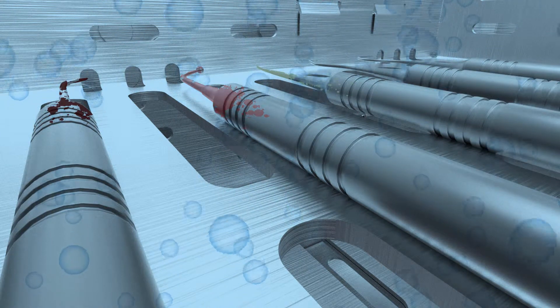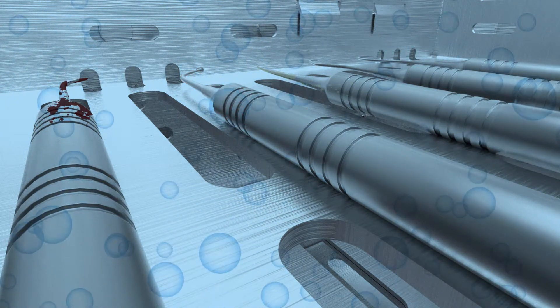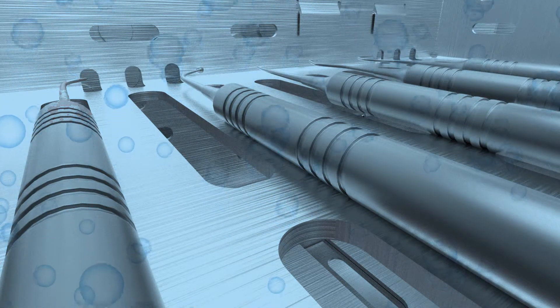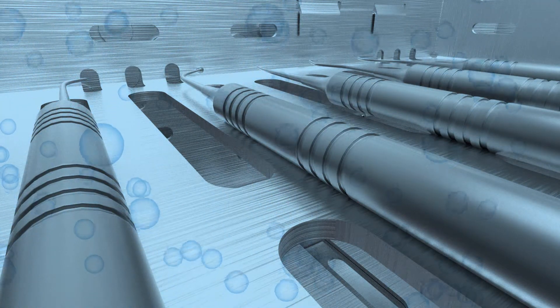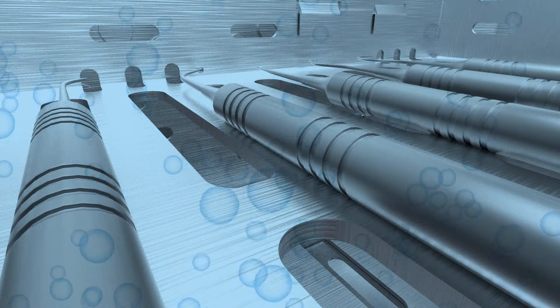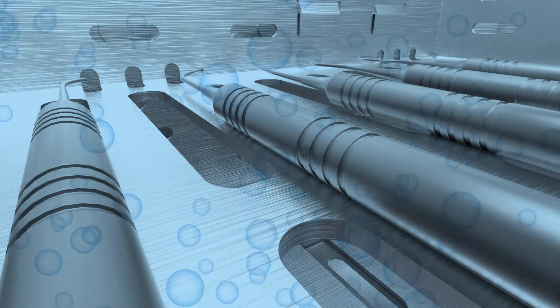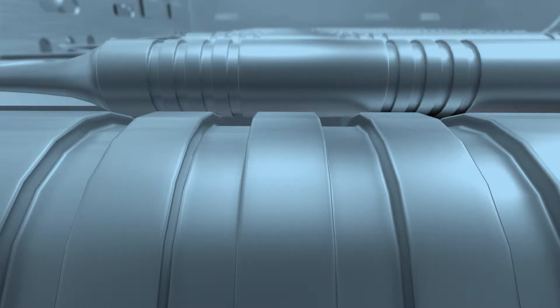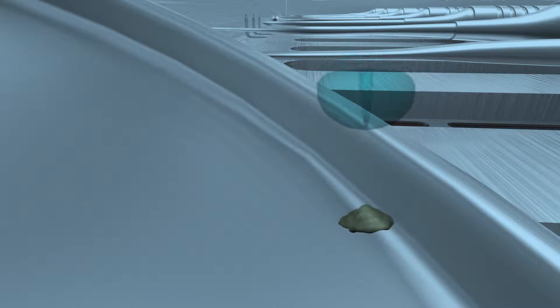During cavitation, millions of tiny bubbles form and then collapse or implode, releasing enormous amounts of energy and shock waves which scour the surface of instruments, appliances and other devices placed in the cleaning solution. This powerful scouring action reaches into minute crevices, removing large and microscopic debris that manual brushing cannot reach.